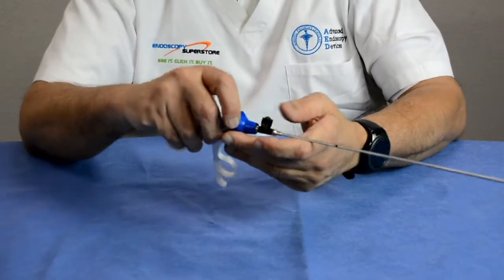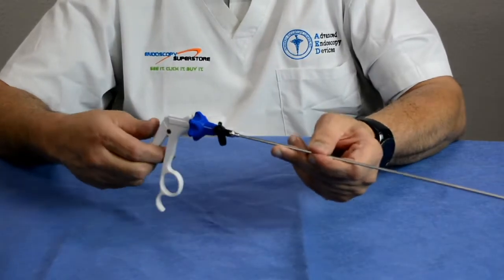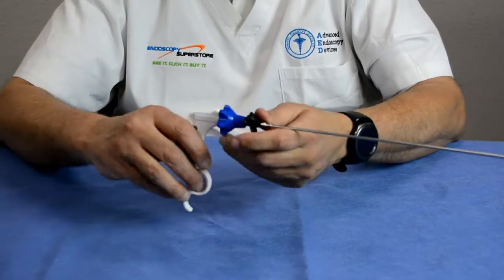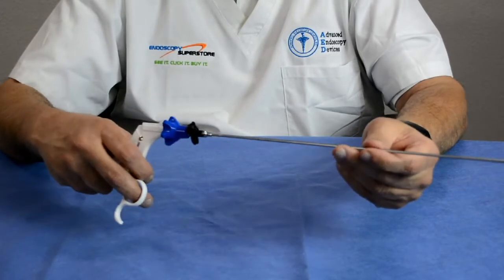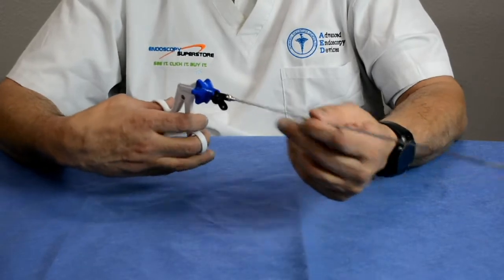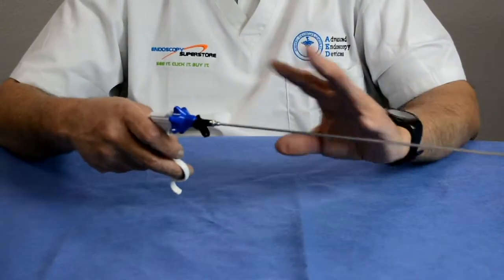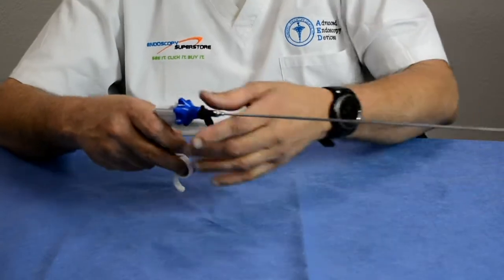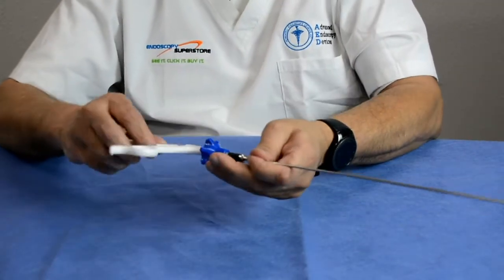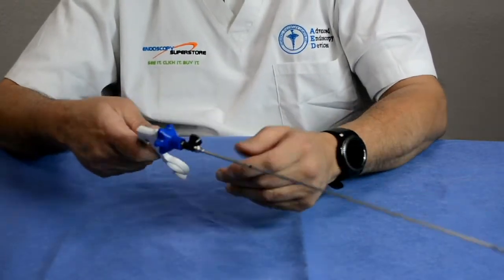One of the ways some companies wanted to help hospitals do more procedures in a day was to develop single-use disposable instruments. A single-use instrument has an ABS handle, comes sterile-packed, you open it during the procedure, use it, and throw it away. Hospitals found this was better for high case volumes — the instrument would always be new, sharp, and sterile without the need for reprocessing. The drawbacks, however, are medical waste and added cost to the surgeon.